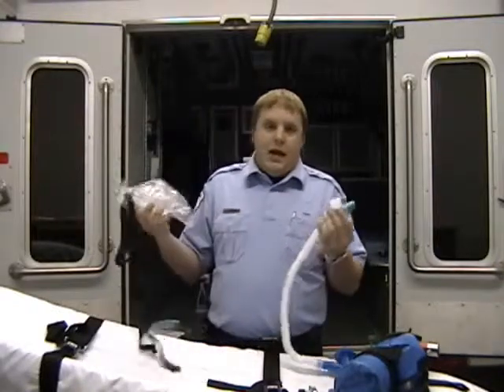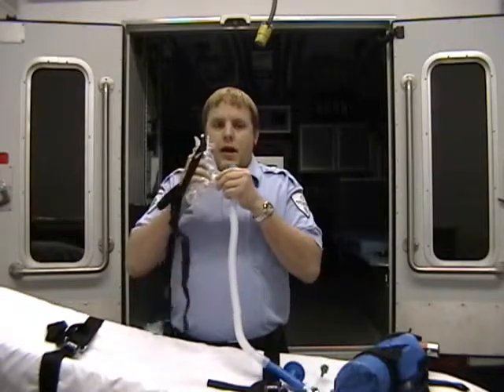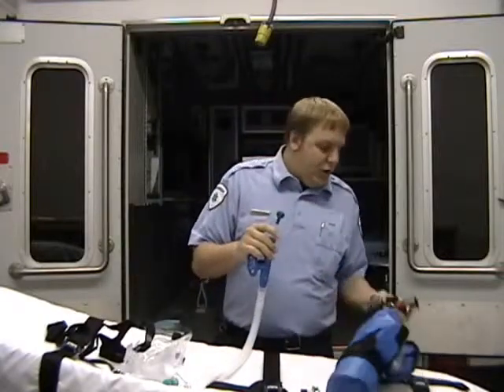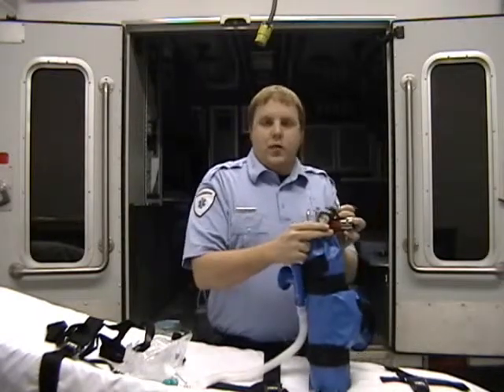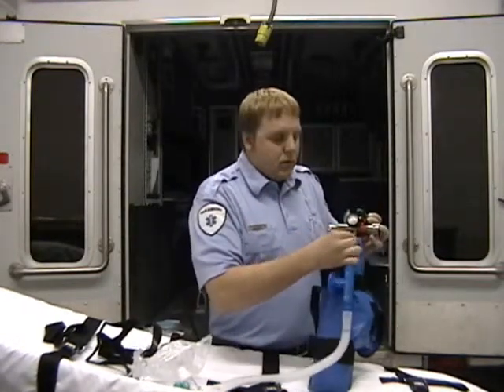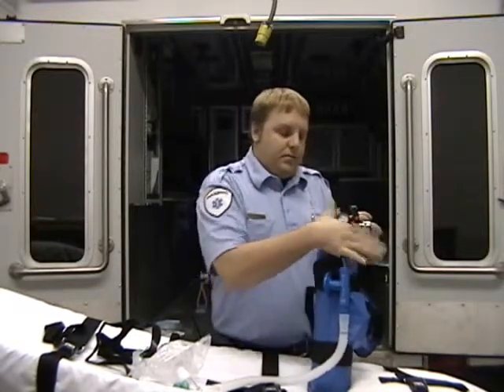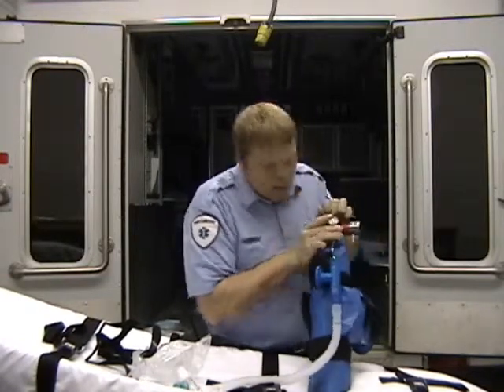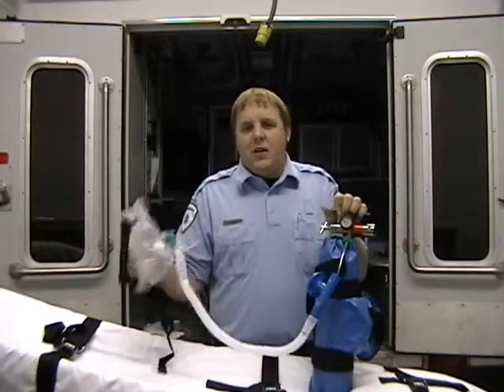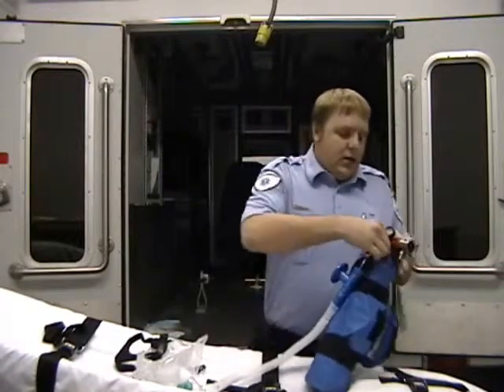In order to apply and set up the CPAP to use it, the only thing you really need to do is attach the PEEP valve to the front of the mask and then connect your oxygen supply. To connect your oxygen supply, you use a portable regulator with an accessory port. You screw your air mixing valve into your accessory port on your portable regulator and turn on your oxygen. Now you can hear the CPAP start working, you can hear the oxygen flowing. I'm going to go ahead and shut it off just for noise purposes and to conserve oxygen.